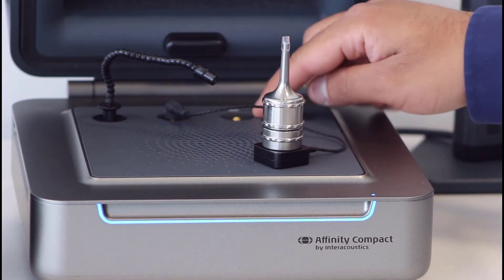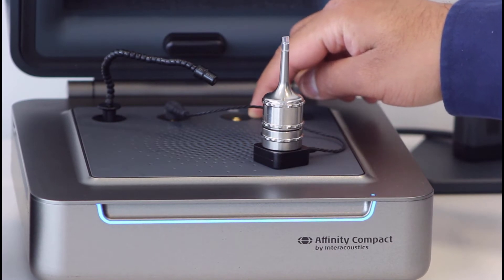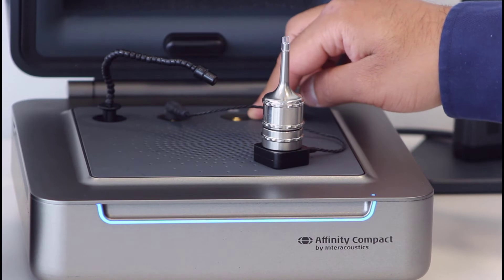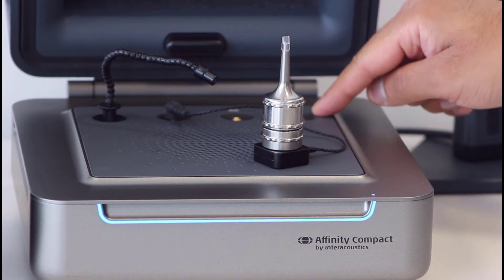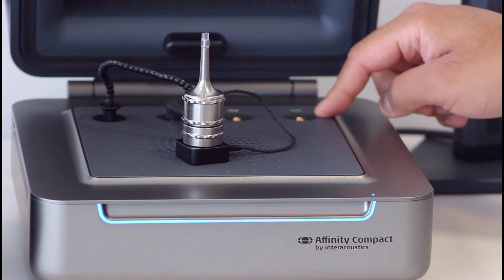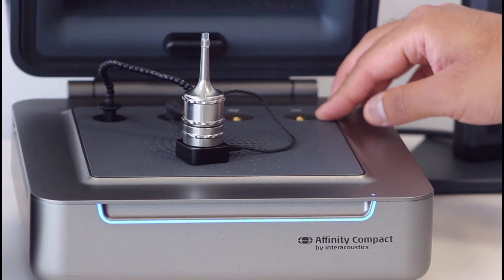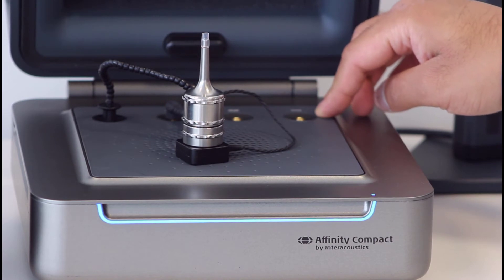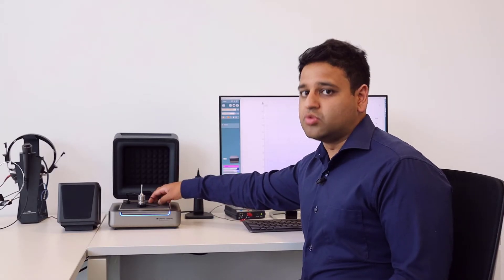The other sockets here are for battery drain. If you want to measure the battery drain of a hearing aid, you'd need to insert a battery drain pill into this measurement. There is also the telecoil socket — if you want to measure the telecoil functionality of your device, you'd need to insert the TMFS coil here. In this example, I won't be using these two sockets.